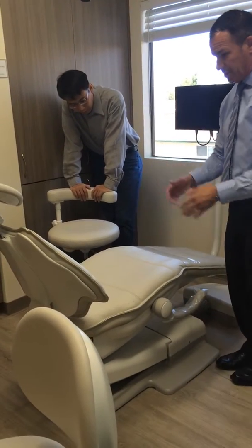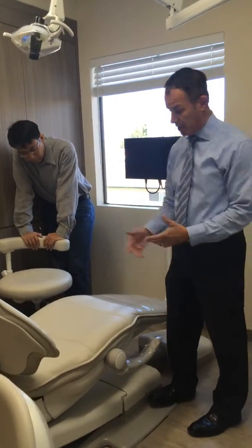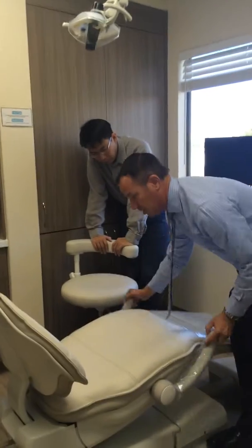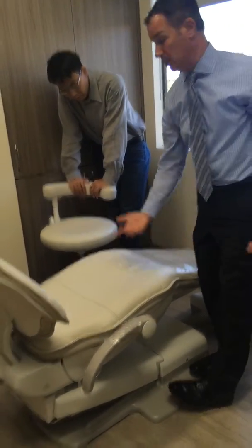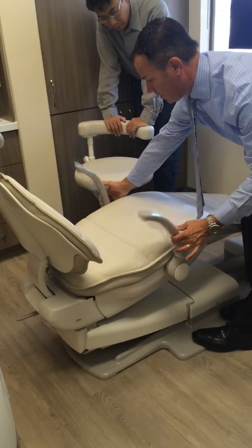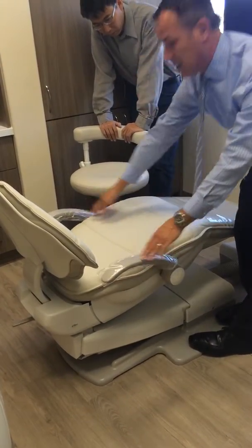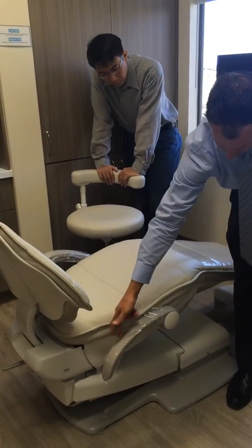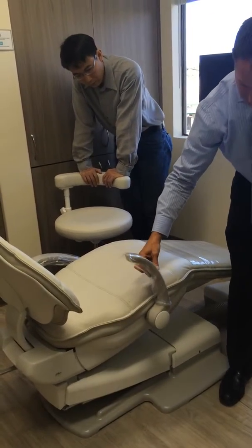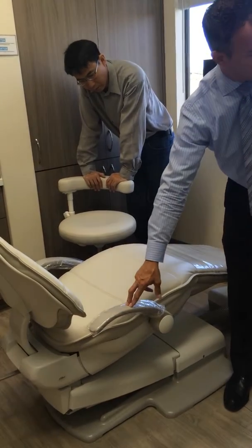So, once we've got them in here, then depending on the size of the patient, you can have the armrest in this position, you can fold them down this way if you choose to, or you can ratchet them up. You'll hear that click, go right about here, and that's where they would reside. When they're down, you're just going to hear it go about halfway, and then it stops.